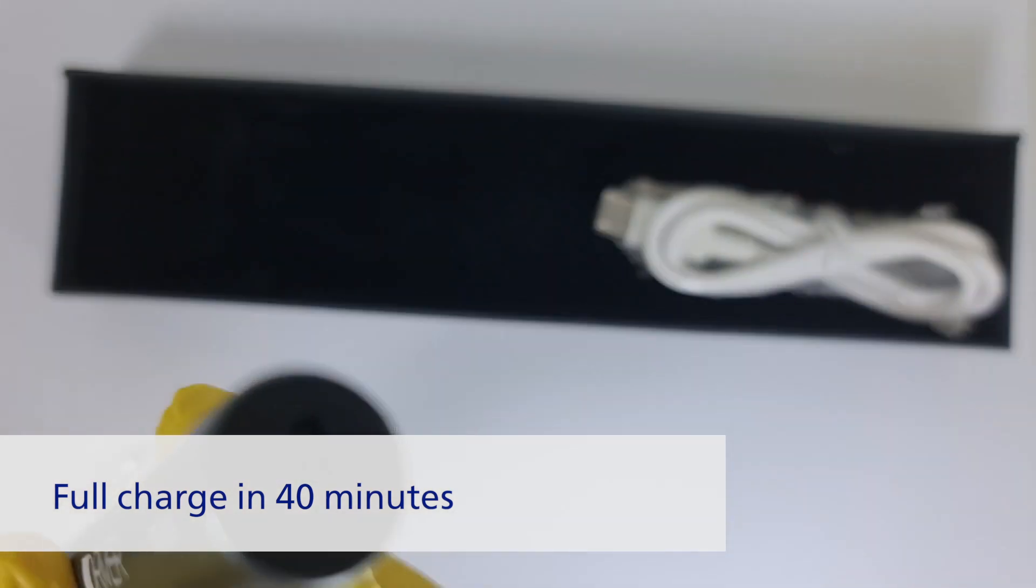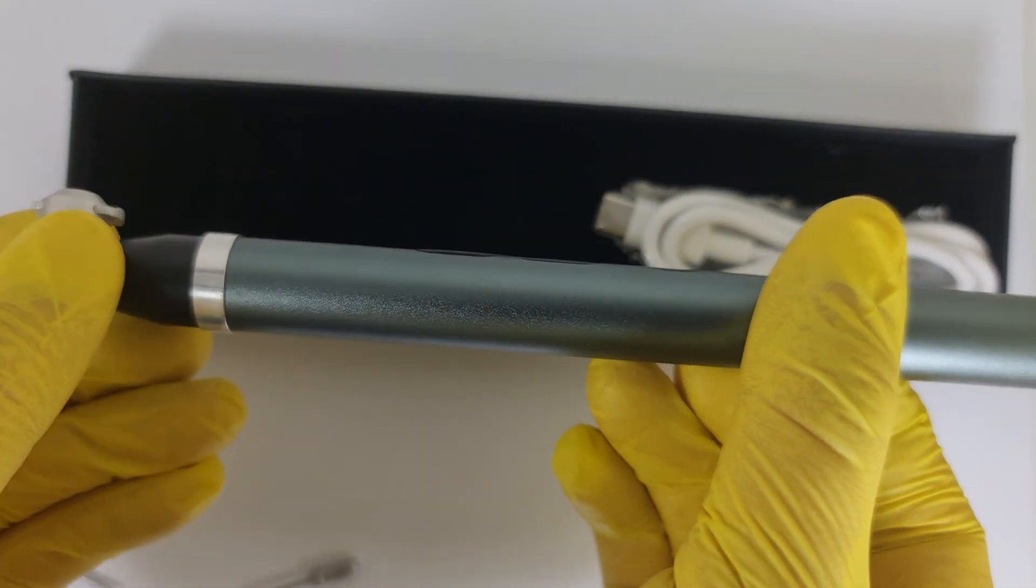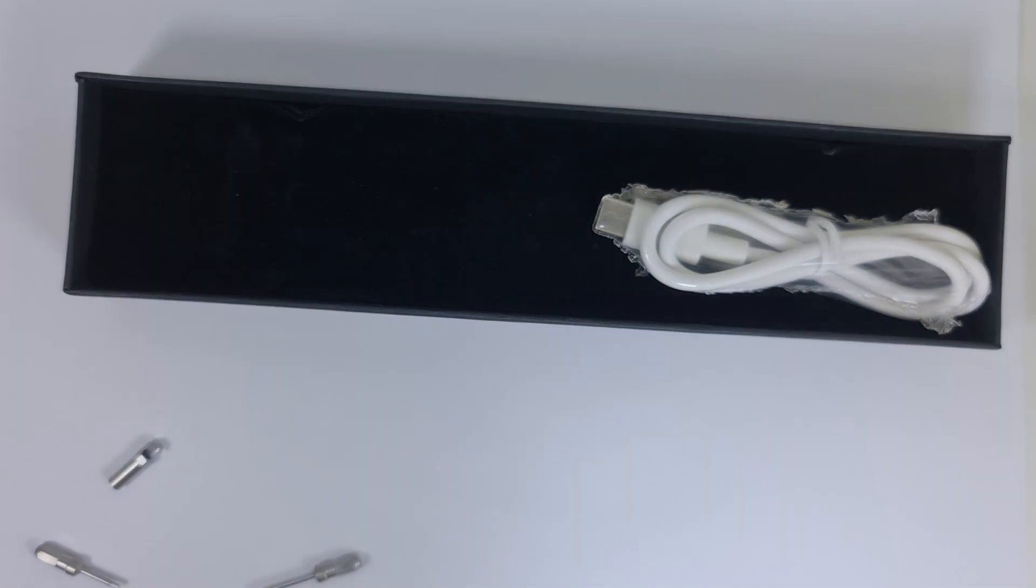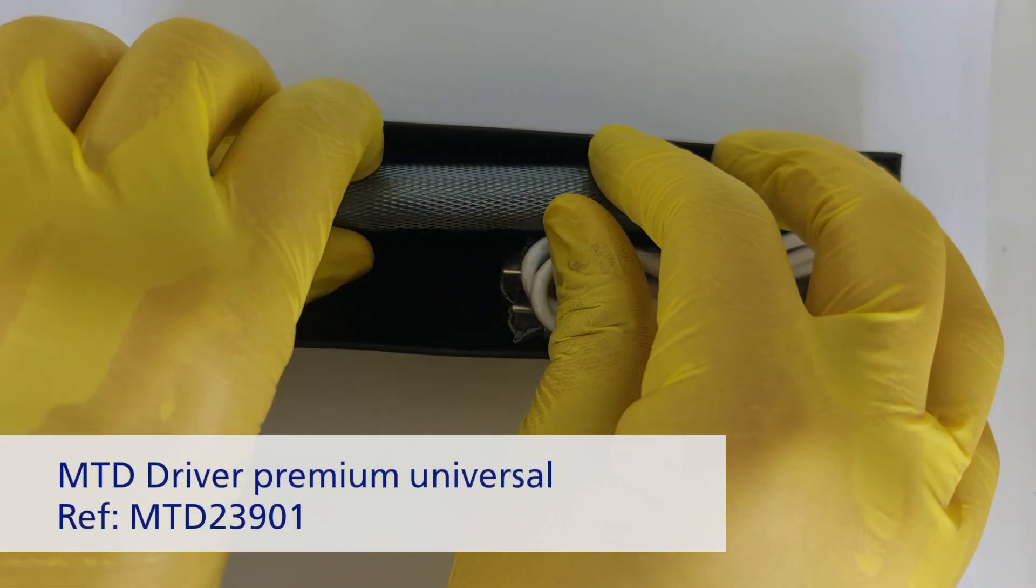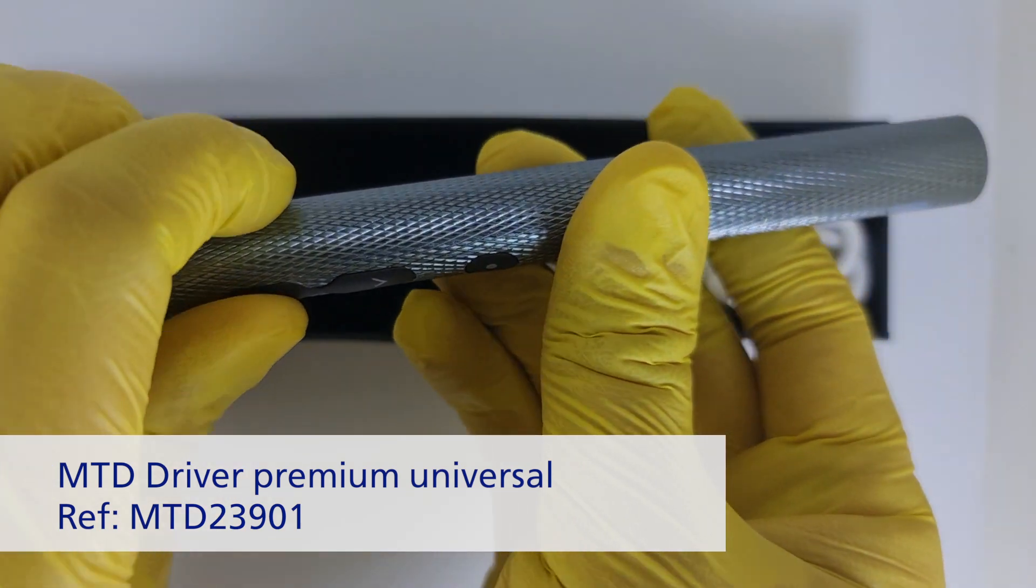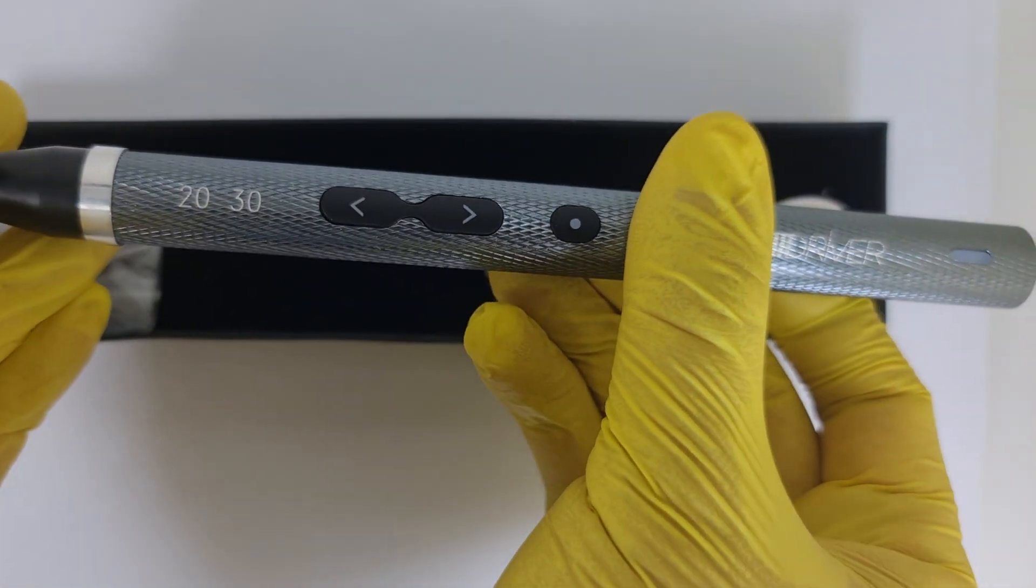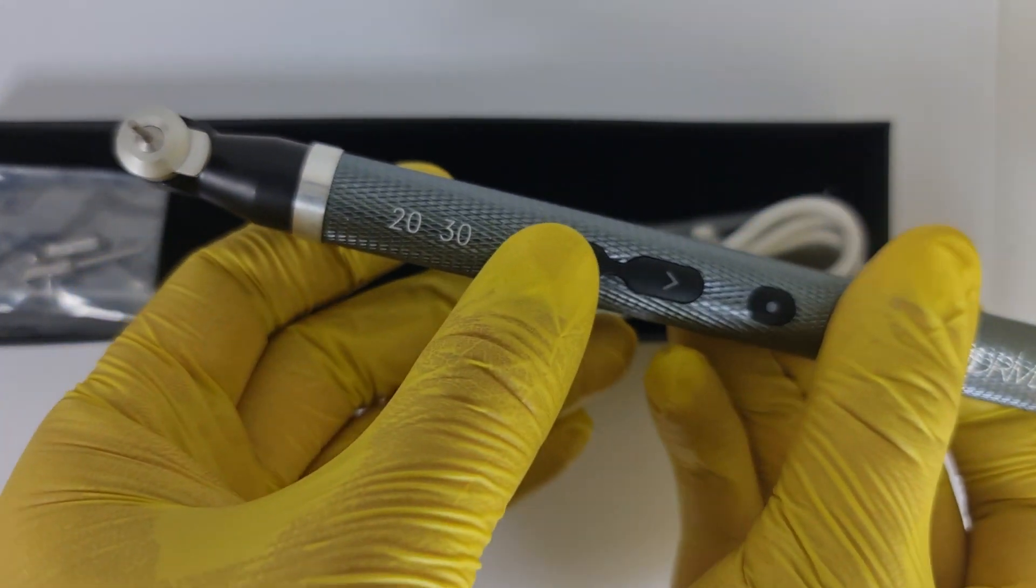The MTD 20/30 variable torque version answers the most commonly asked question: How do I not over torque the healing cap or cover screw with the torque recommendation of 20? So here is the solution.